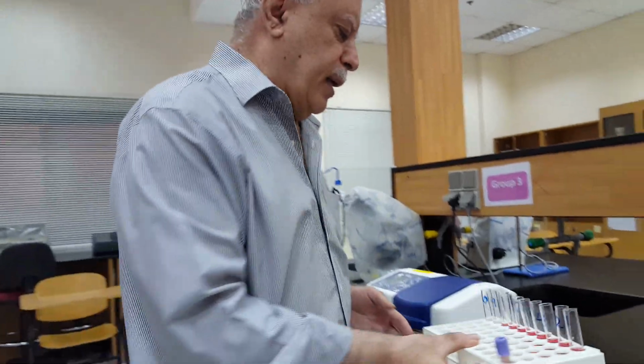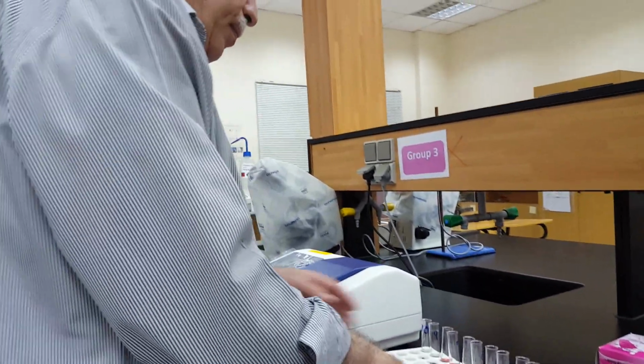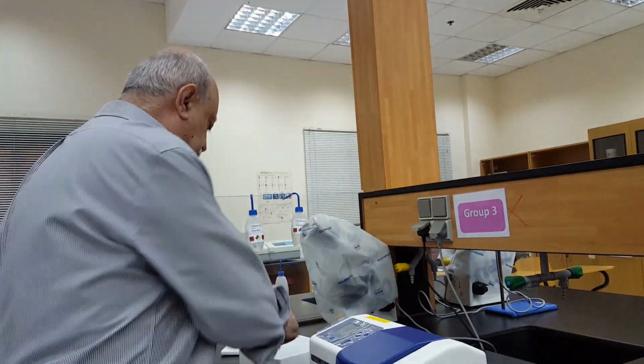Let's see. We start with number 10. We expect 0% lysis.